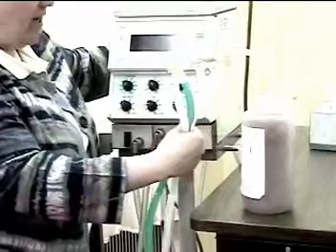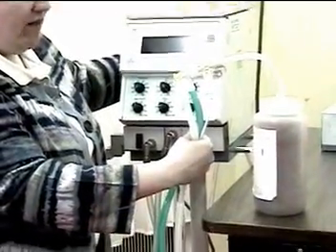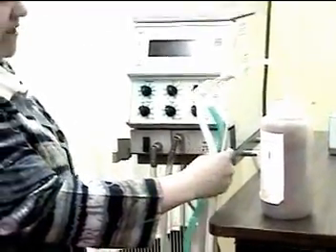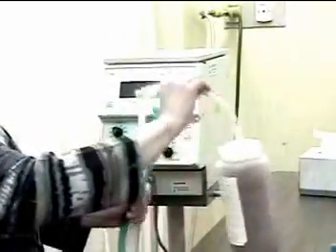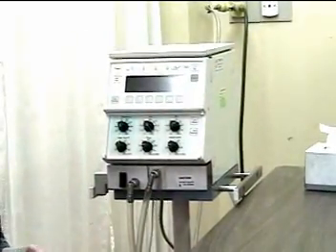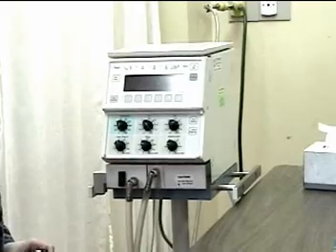To turn the ventilator on, I need to reach my arm around the back of the ventilator and there's a push button. The machine then goes into a self-test.